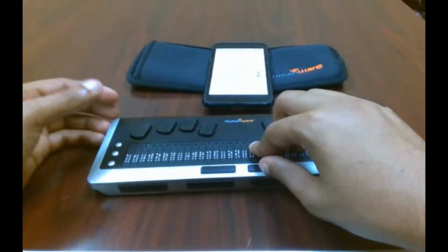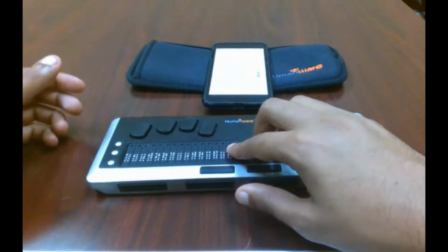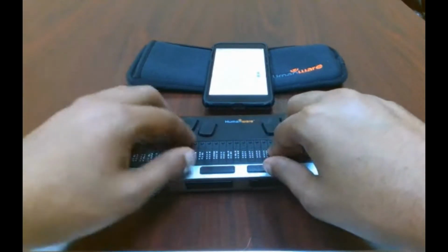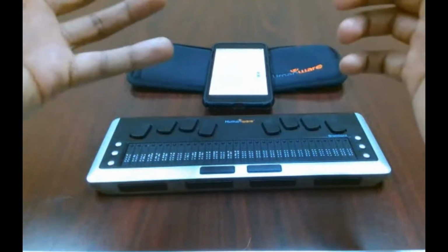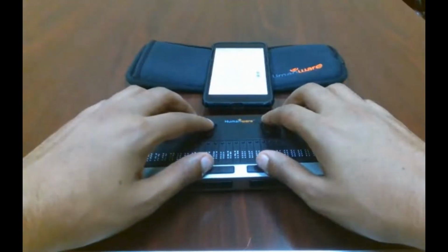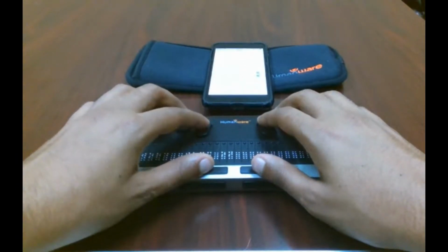Talk about what chords are. As we know, for those of us who are musicians, a chord is a series of notes that are held down together at the same time. What that means here is whatever keystroke you do, most of them will be a chord. For example, if I wanted to go one area to the left, I would do the A chord, which means I would hold down the space bar and press the letter A.